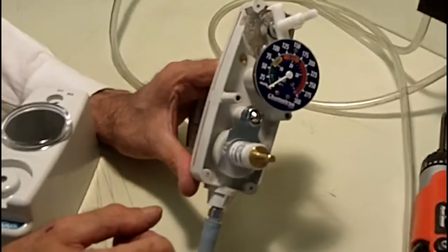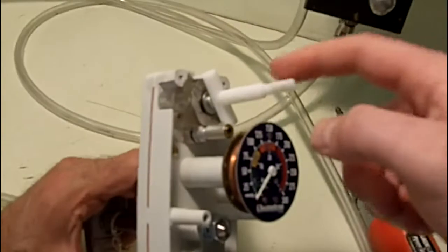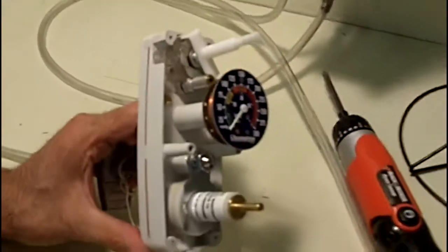If it were to tear or something, failure in the regulation mechanism. We're the only company that offers a secondary vacuum relief as an additional safety measure should this happen over time.